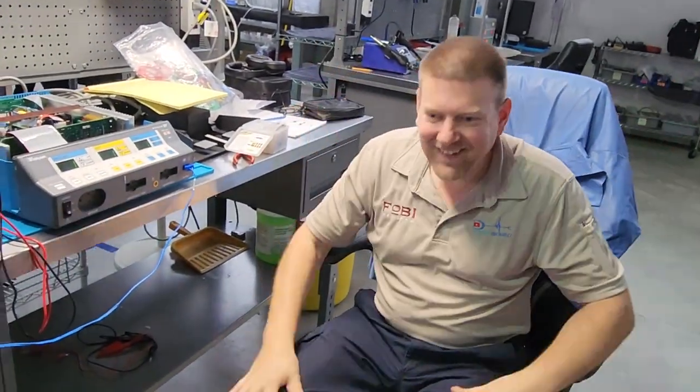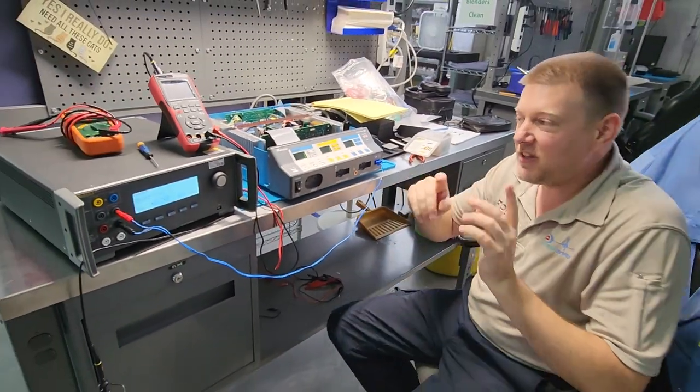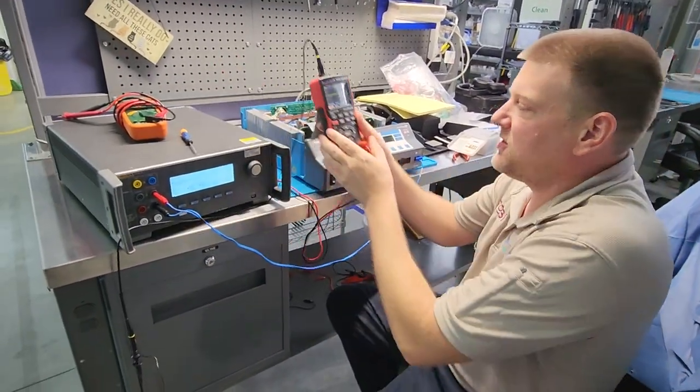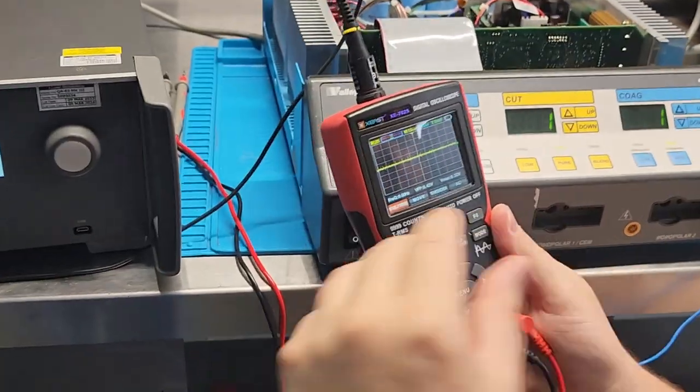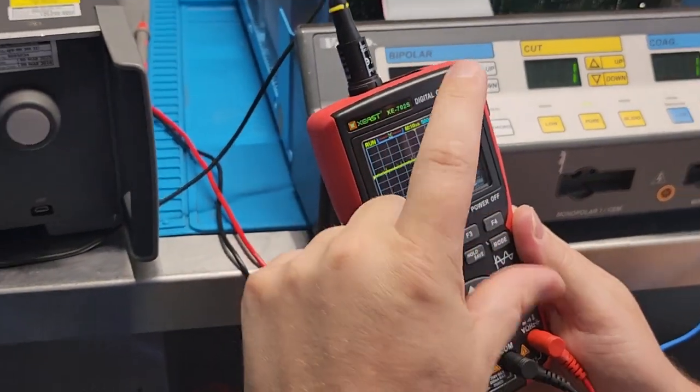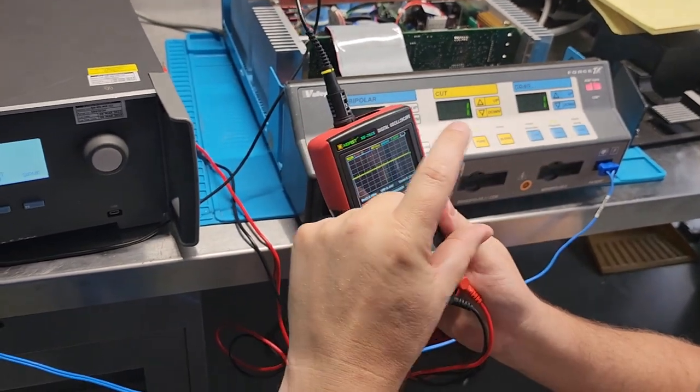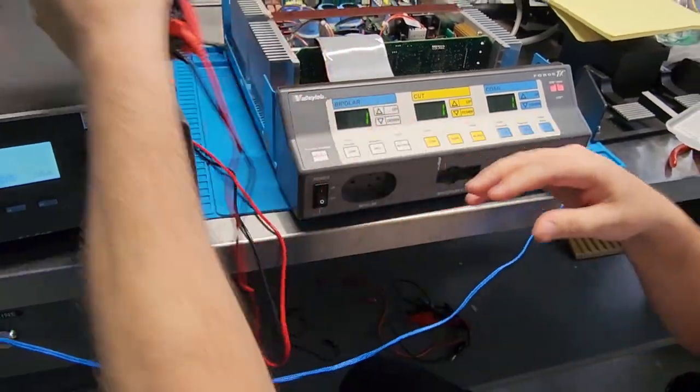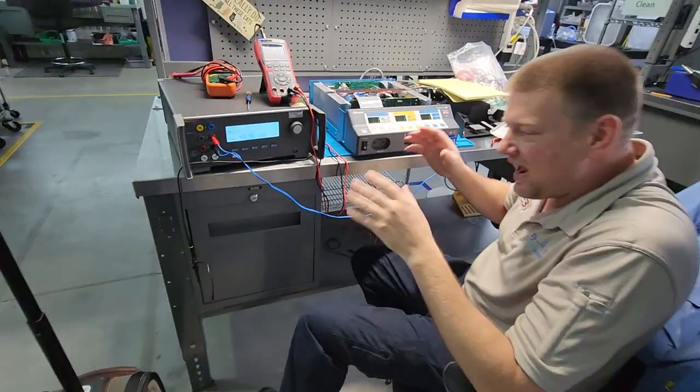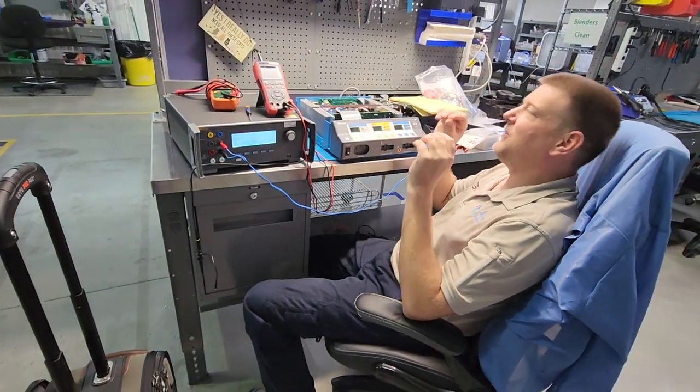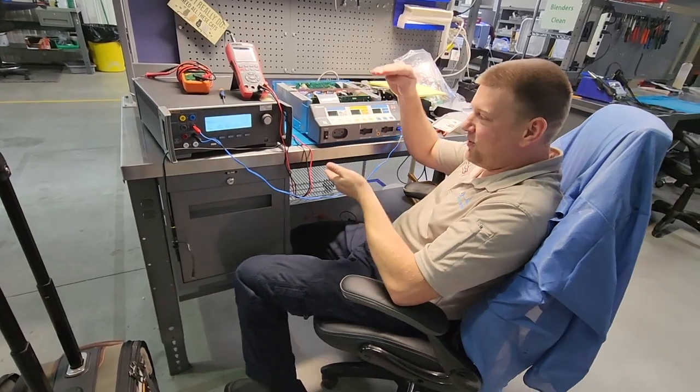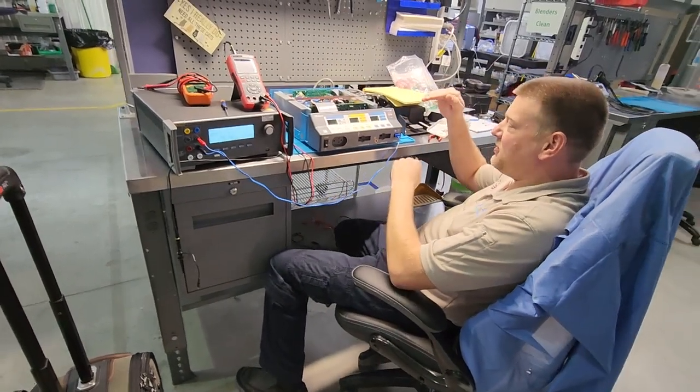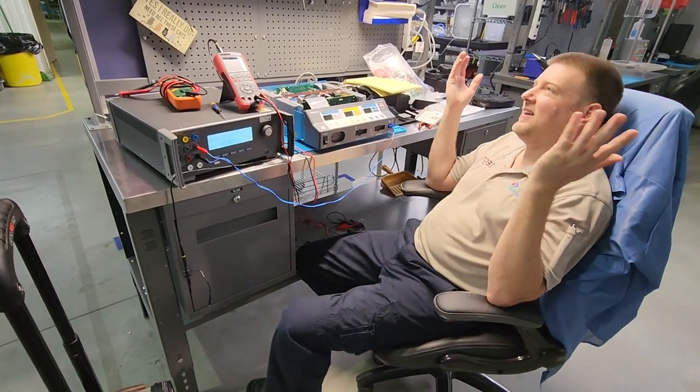It took me so long to get that. Now, the key is that when you are using your oscilloscope, you want to go by the frequency and by the amplitude. The key is the amplitude. So you want to make sure your amplitude is at the very maximum and then stop turning it. Before I was trying to get it to 80 to 82 kilohertz, which is not the game. The game is amplitude of the wave. So get it to the highest amplitude, then go ahead and set your resistance.